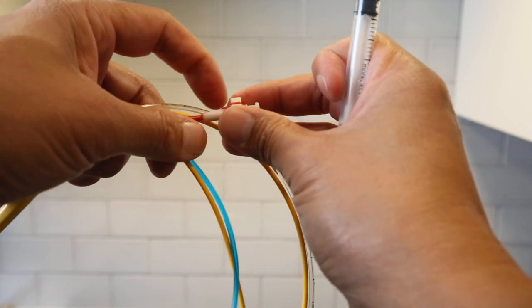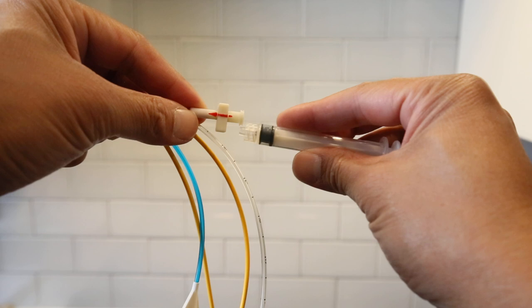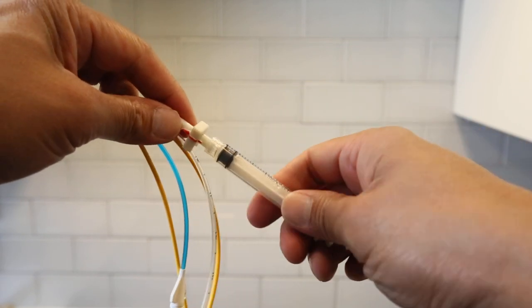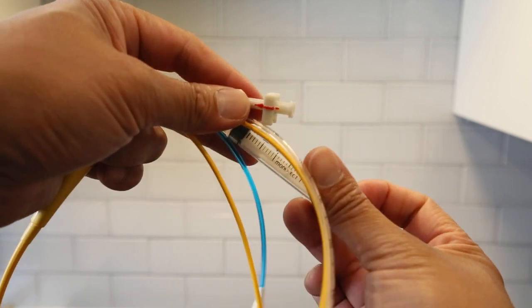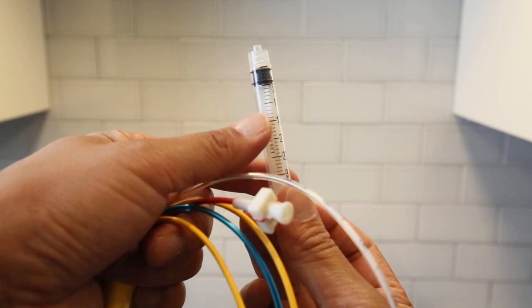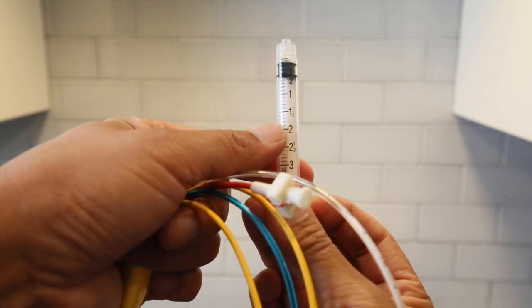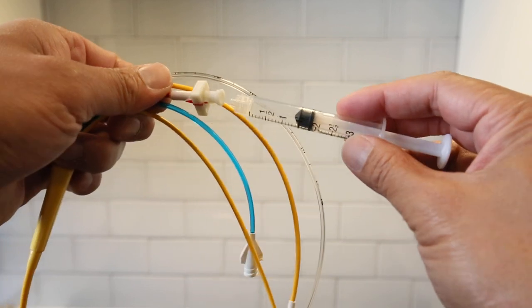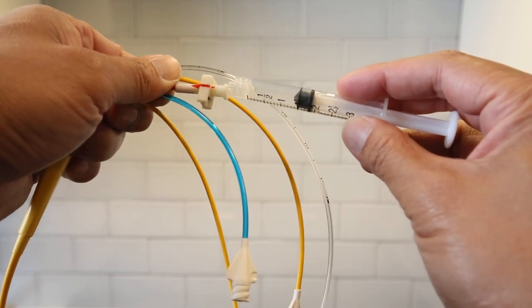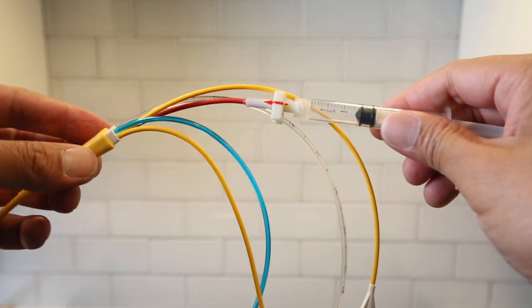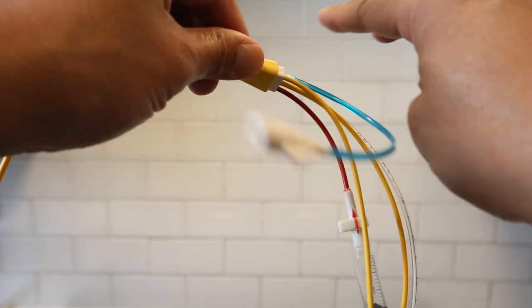So here is where I can put that. But usually I would get air first, so right there only one and a half. And I'll get the safety injector right there.